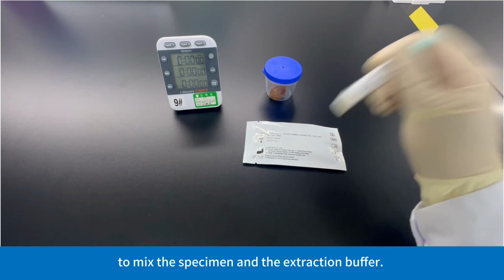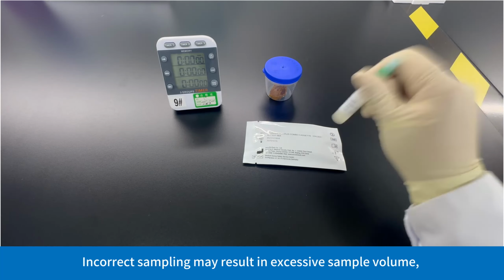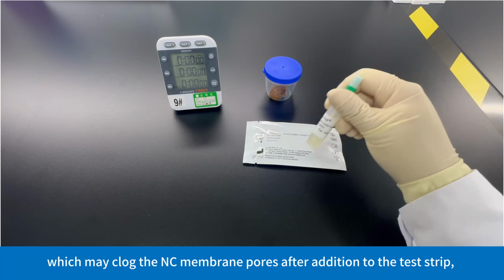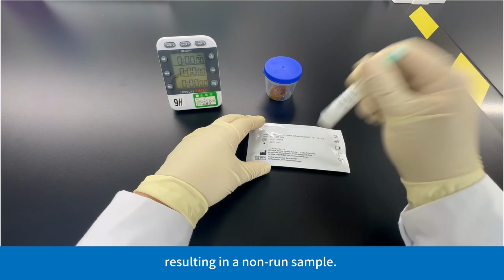and the extraction buffer. Incorrect sampling may result in excessive sample volume, which may clog the NC membrane pores after addition to the test strip, resulting in a non-run sample.